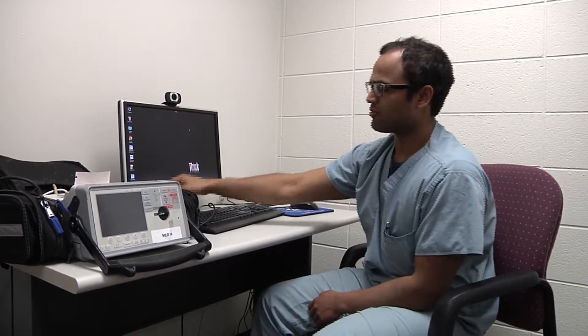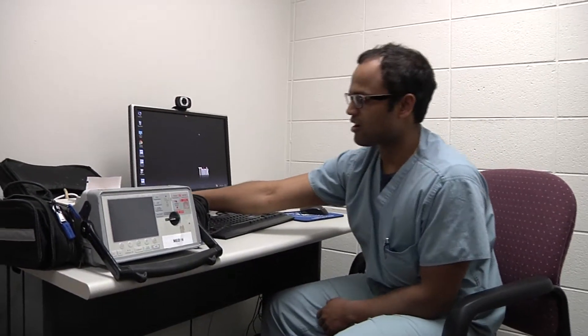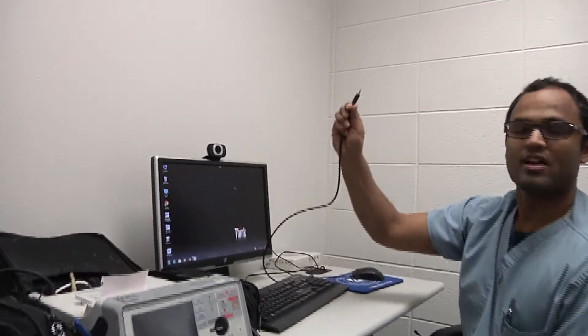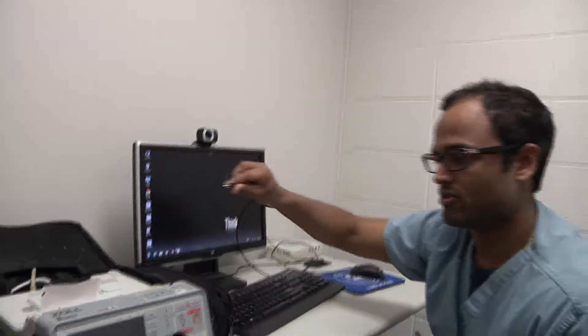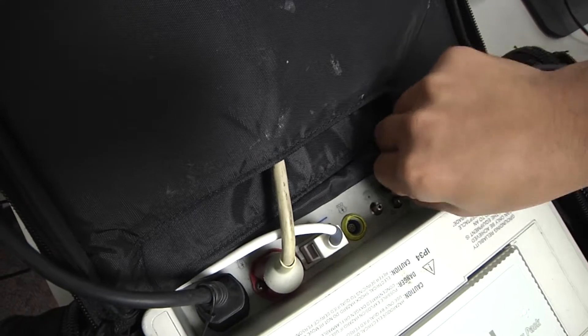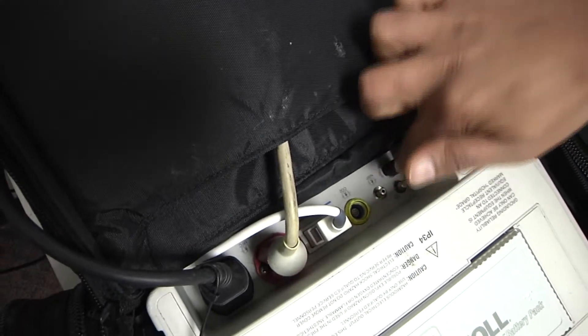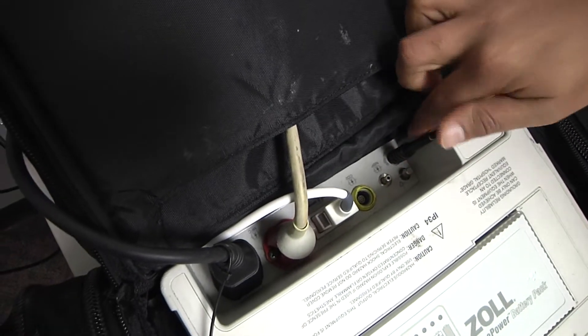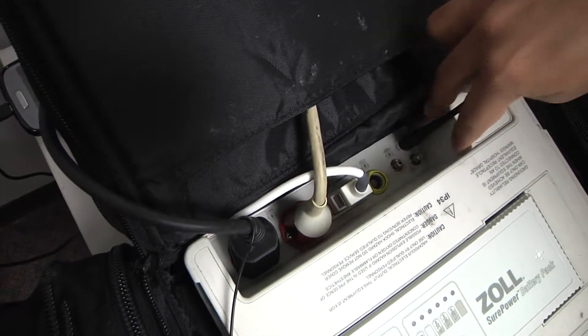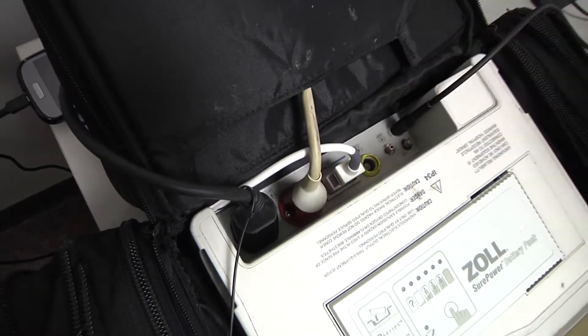We're first going to start off by plugging the RS-232 cable into this port right here, which is located on the rightmost side of this display.